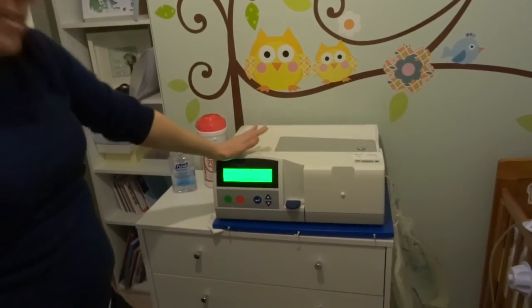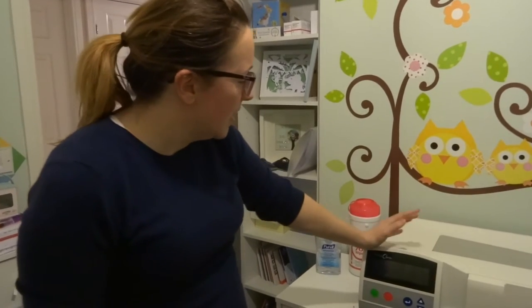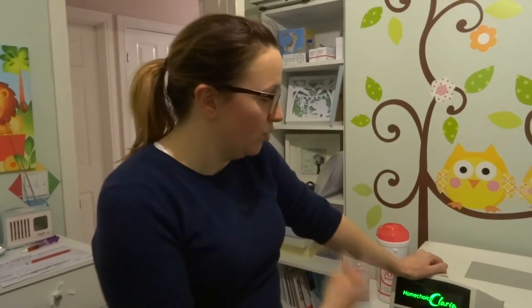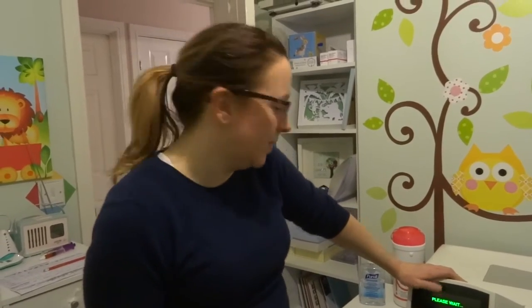The first thing is to turn it on at the back. This is his dialysis machine — we've shown it before but not working; this is it just starting up. It's very clever because it connects to Great Ormond Street and sends all of Ethan's dialysis information to them. In a minute we'll connect to the network — that can sometimes take a little while or sometimes doesn't connect at all.